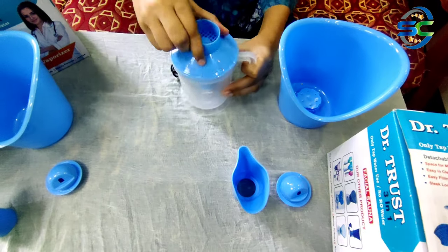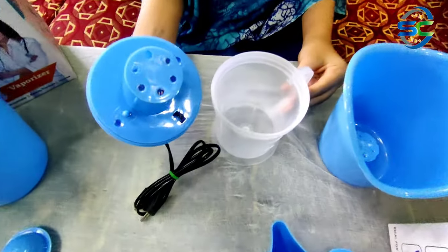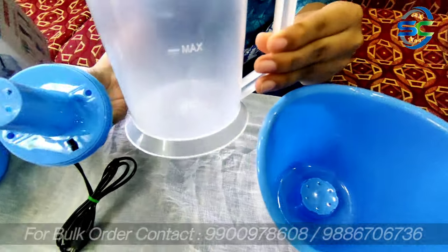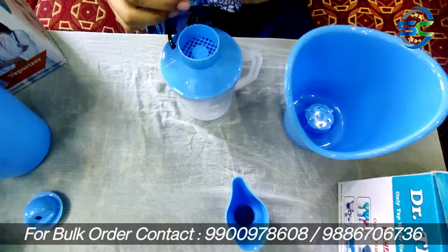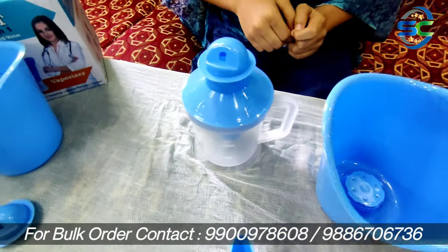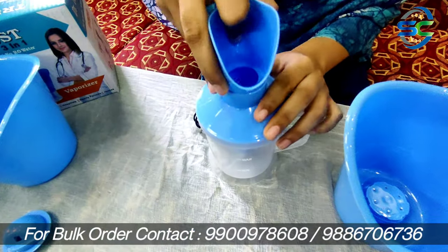How do we need to use the electrical vaporizer? In this container, there are three levels: low, medium, and maximum. We have to add water up to the maximum level.